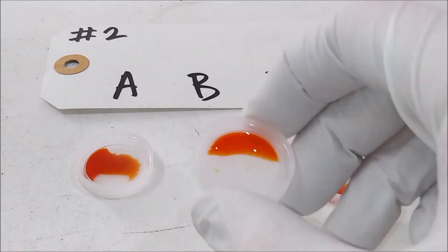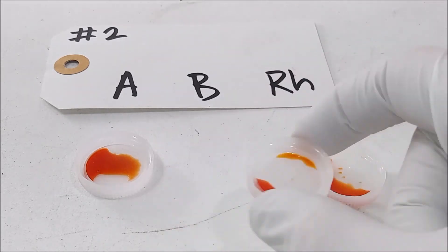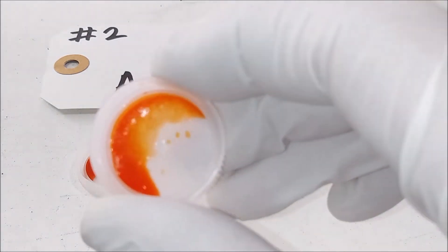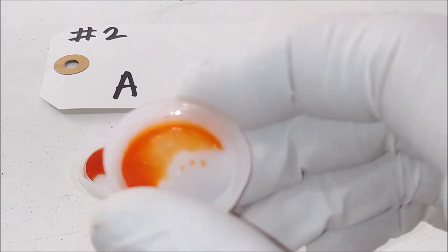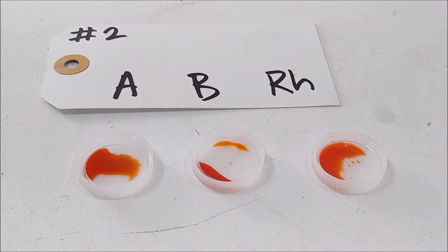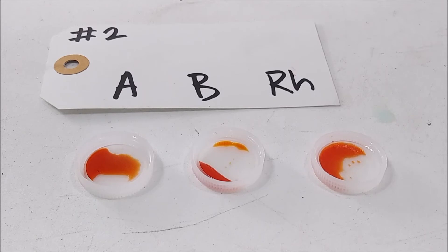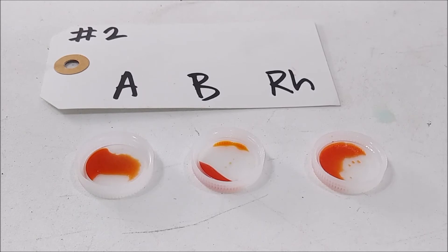From here we can see that we have agglutination in A, nothing in B, and agglutination in RH. So this patient is A positive.